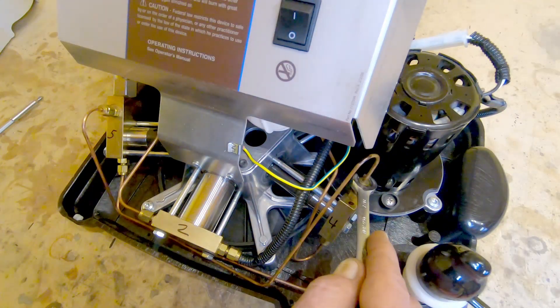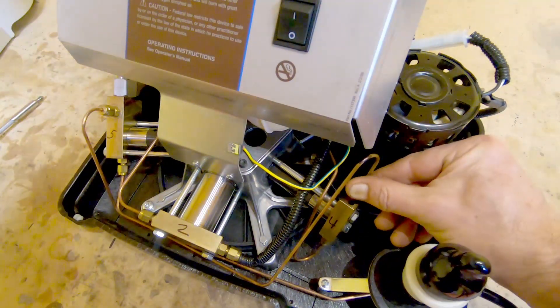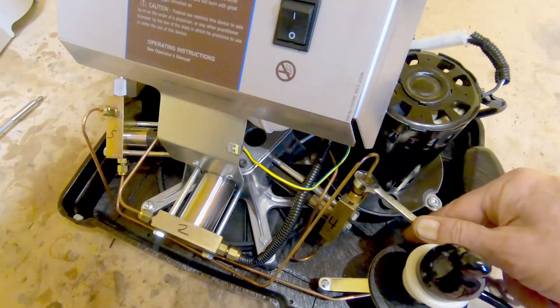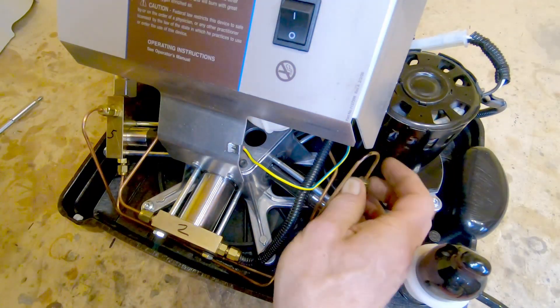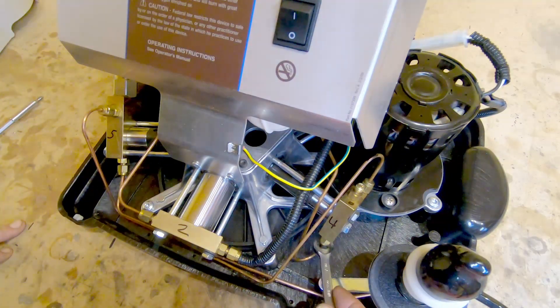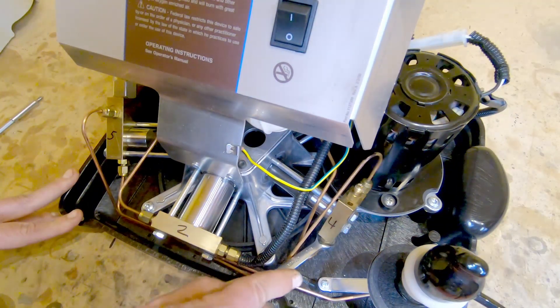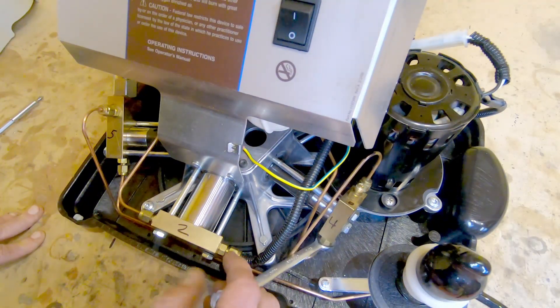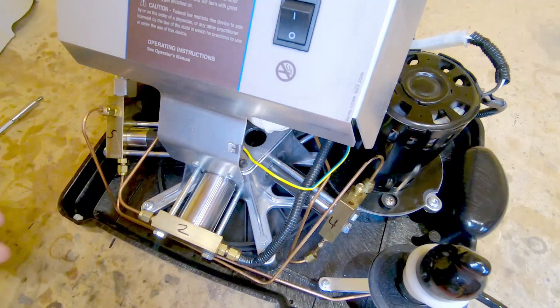Very carefully — they're not tightened super horribly tight. It's possible that my warning about the wrench type may be a little bit overboard, but that one was a little bit tighter. I always prefer to use the proper tool if the proper tool is available, because it's very, very easy to booger things up using the wrong tool.